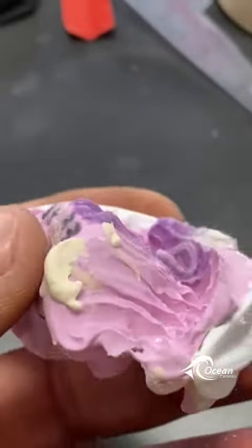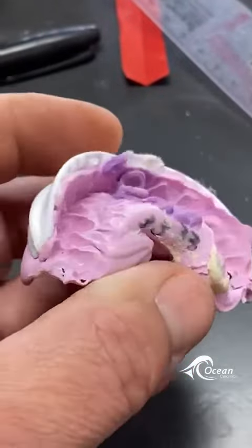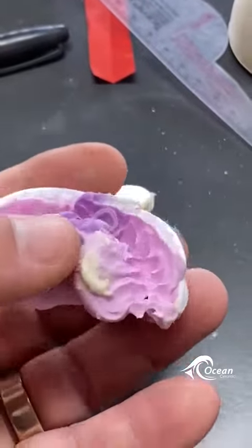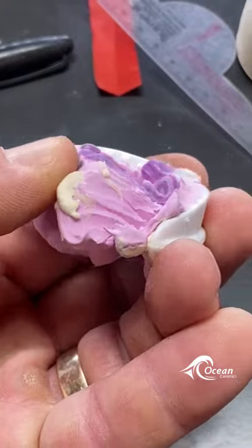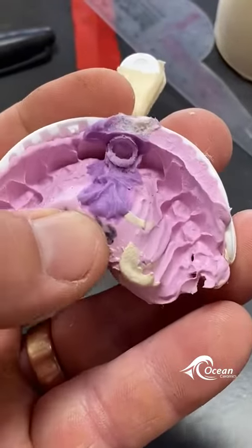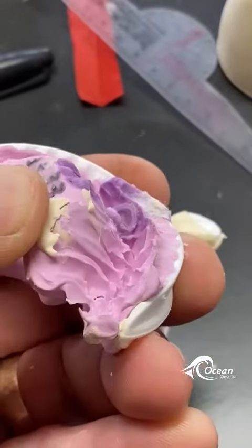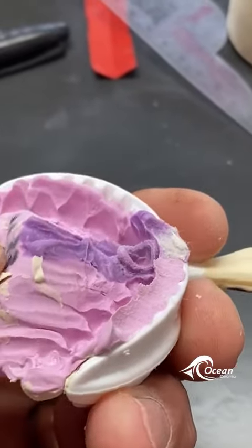But here's one major flaw that I need everyone to take note of with caution. These kinds of trays for an anterior case, even though it's just one unit, are very unstable. Have a look at this — when you have a patient that bites really close through the teeth with heavy wear facets, you can see how wiggly, wobbly, and unstable this makes this crown.